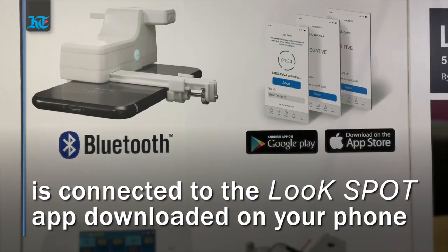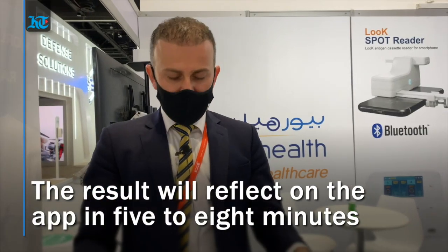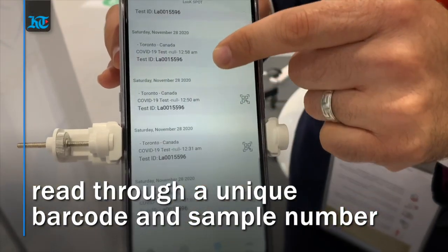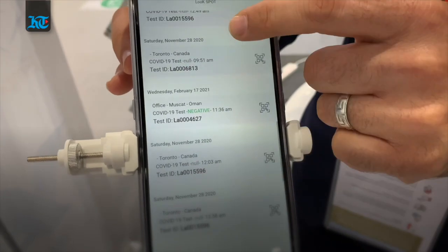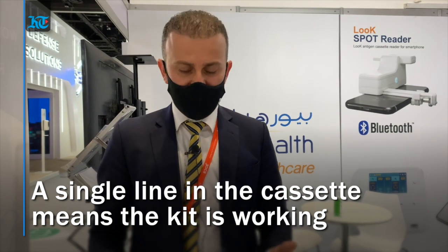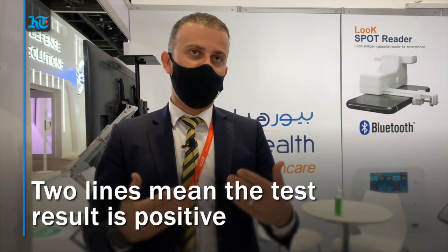Immediately transfer to the application on your smartphone, so you will have the result shown immediately with a unique barcode reflected to the system. Wherever it's configured — in any facility — you will have it with a barcode linked to your name and number.